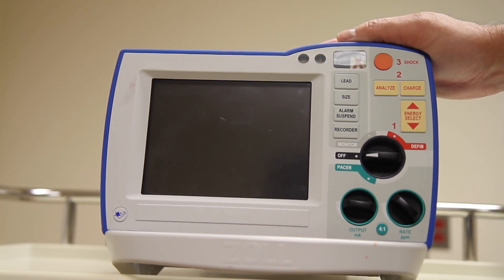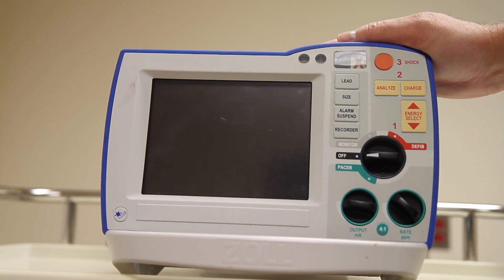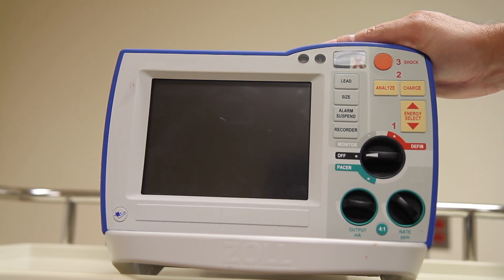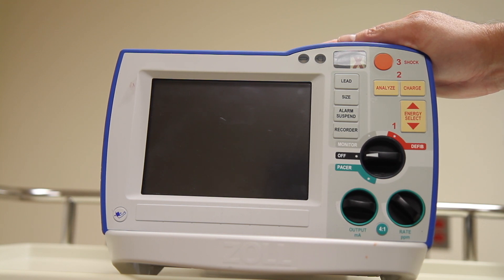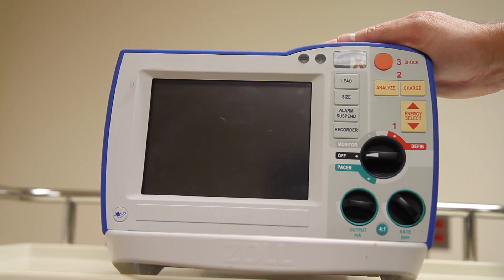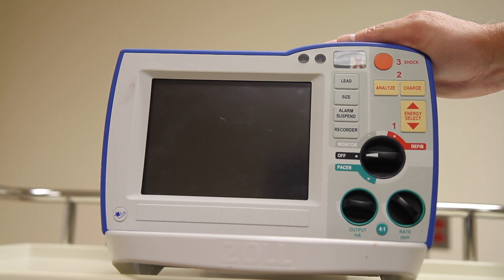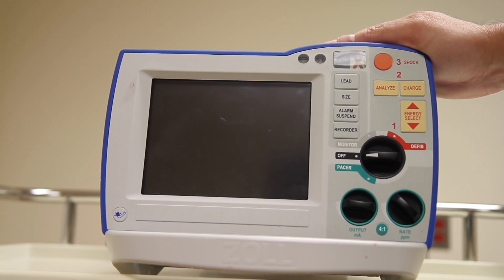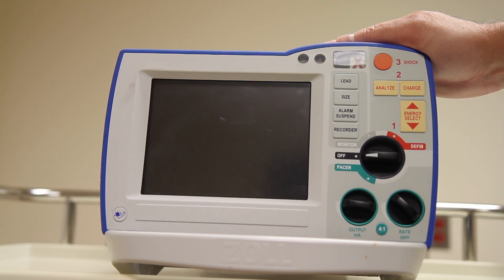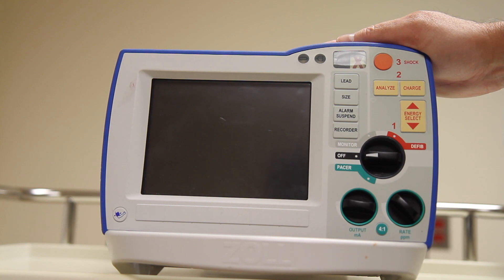Depending on the make and model of the unit, it may default to looking for the hands-free pads. The rationale for that is, since it is a monitor defibrillator, the manufacturer assumes that you're using it in an emergency and will use the hands-free pads. You should be familiar with your own equipment to know whether it will default into hands-free pad mode or limb lead mode.